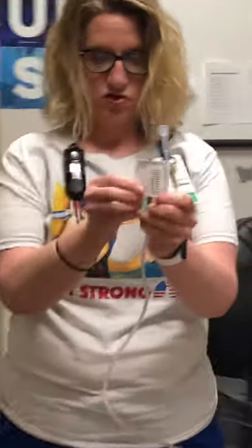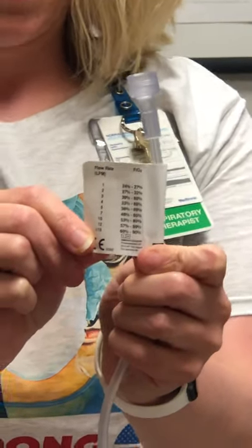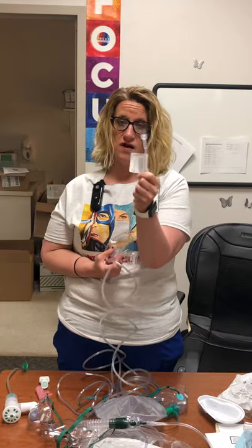The last one is the Oxymask, which is what you're going to see most often. We also have OxyKid and OxyMask too for kids. All the masks have a tag on them that tells you the liter flow and what percentage of oxygen you're getting. You would need this if the patient is wearing the mask and you're drawing ABGs — you'd put in the percentage or liter flow for your ABGs.